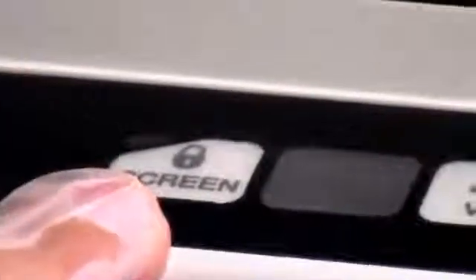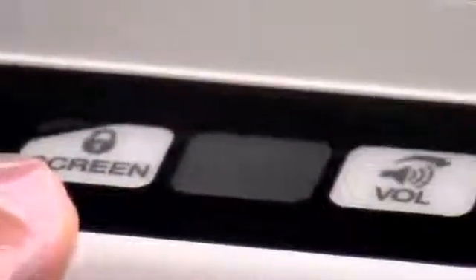Starting with the screen lock key: when the yellow light on the screen lock key is lit, the screen or off-screen controls have no effect when touched until you press the screen lock key again.